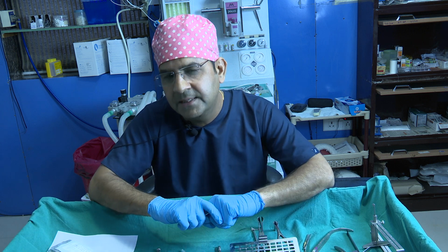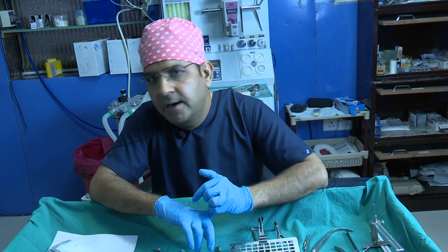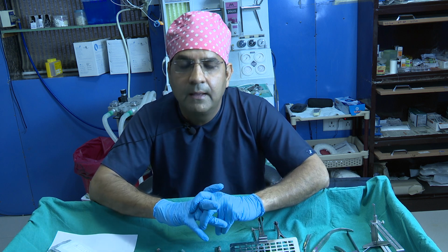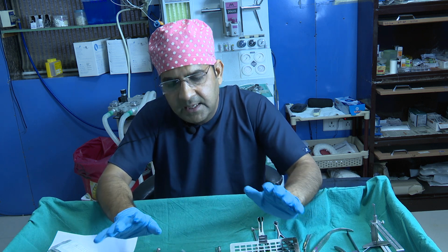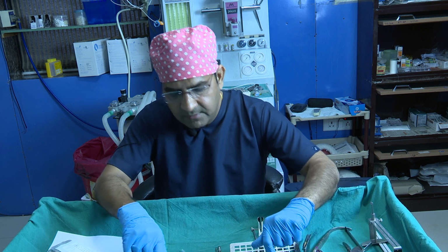First you purchase the basic instruments, and always remember these: 4-0 and 5-0 PDS suture, 6-0 Vicryl Rapide for closing, 5-0 Prolene sutures for alar base excision closing, and 4-0 Vicryl for the quilting suture of the septum. So these are the basics once you start rhinoplasty, along with profilometers, angle measurement, bone cutter, Piezo, and once you do more and more cases, then you can purchase them.